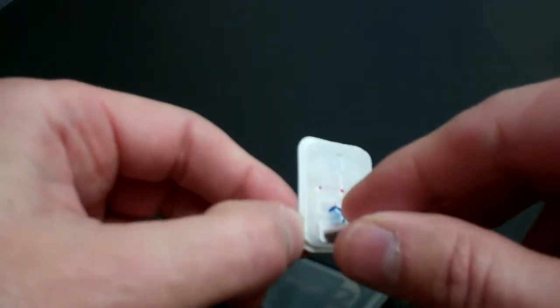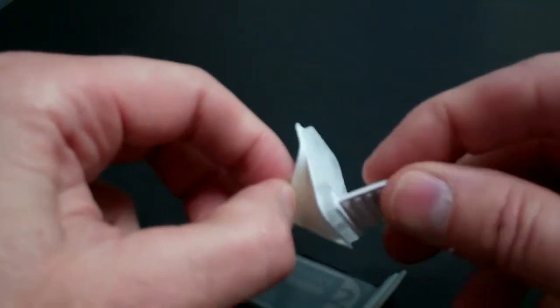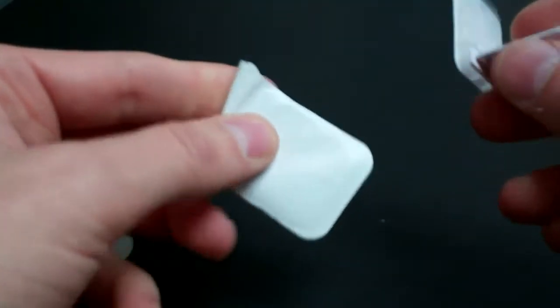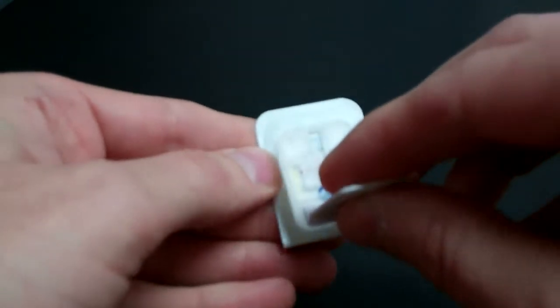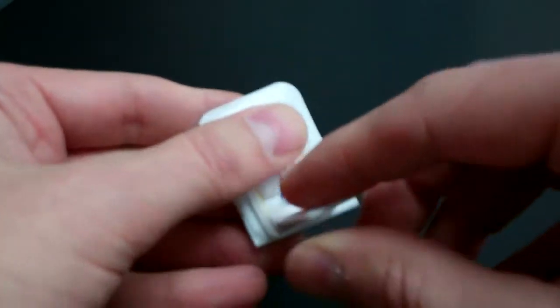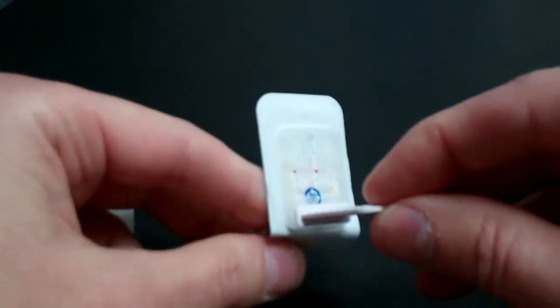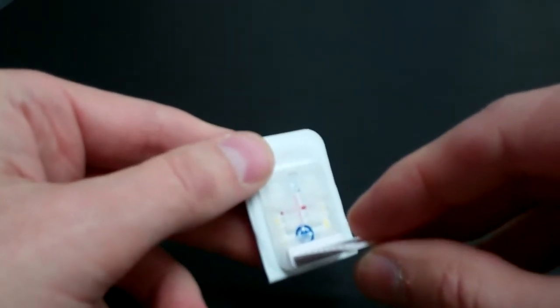The Unigrip for film and phosphor plates is designed with a repositionable adhesive that will adhere to the envelope, and you can just stick it right onto the envelope and take whatever indication that you need relative to a full mouth series.